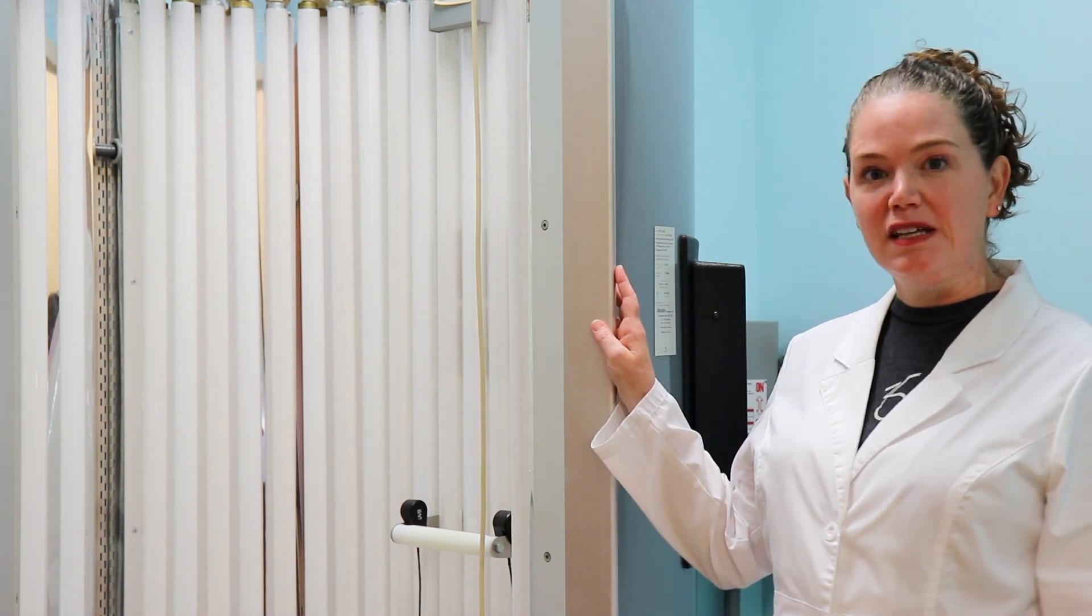So we actually have two stand-up booths like this. One of them is just UVB narrow band UVB lamps, and the other one is a combination of UVA and narrow band UVB. So depending on the patient's skin condition, sometimes we use one type of light or another.